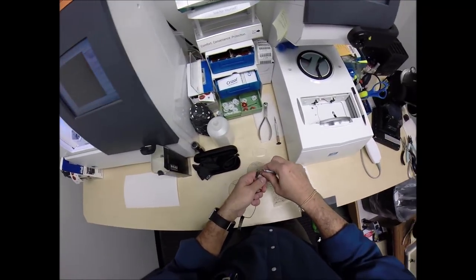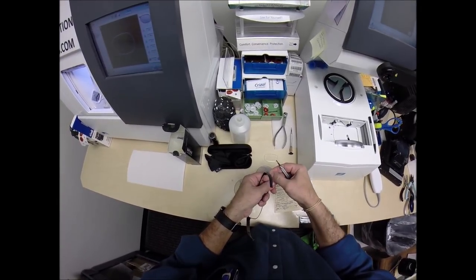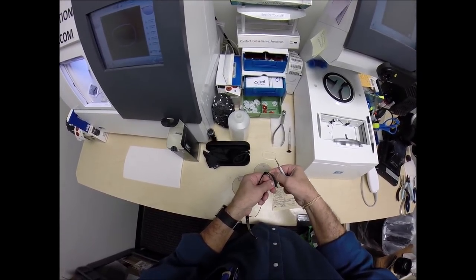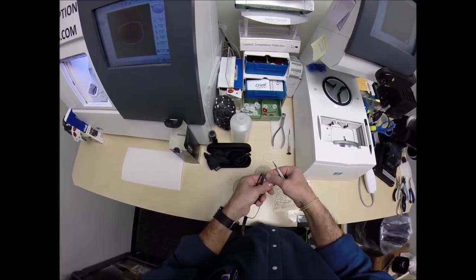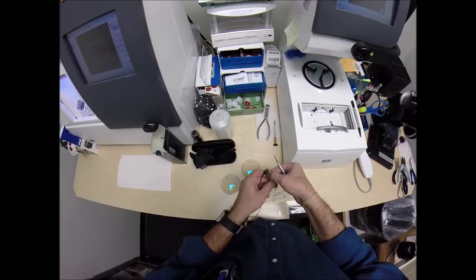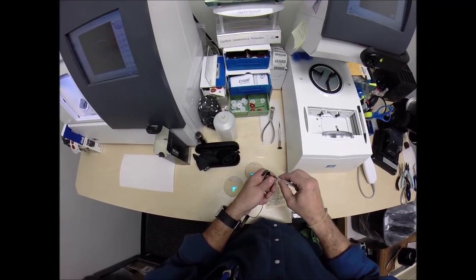And pop these out. Oh, almost lost that screw. That would have been fun crawling around on the floor trying to find that. Get back in there. I'm going to remember that when I'm putting the lenses in it.